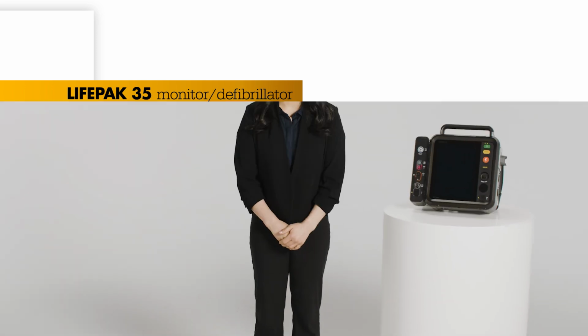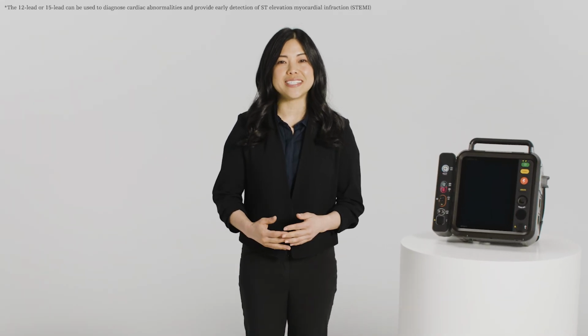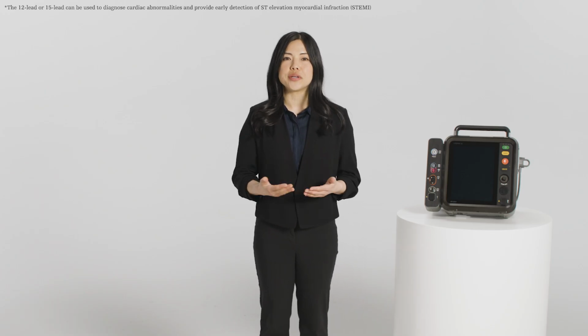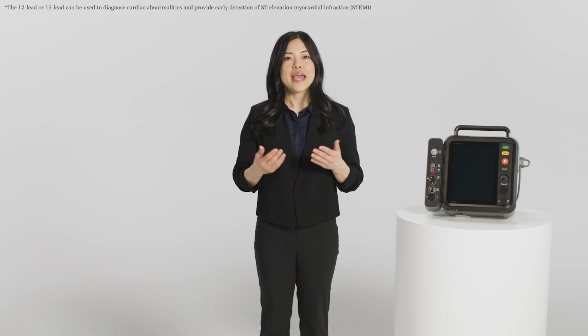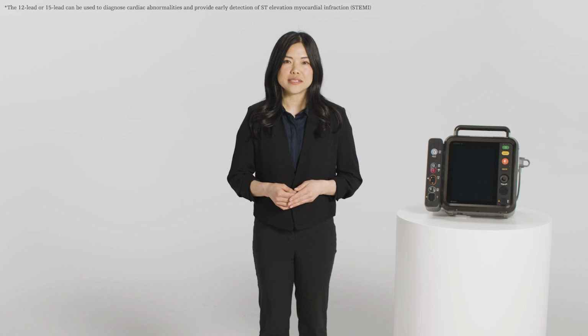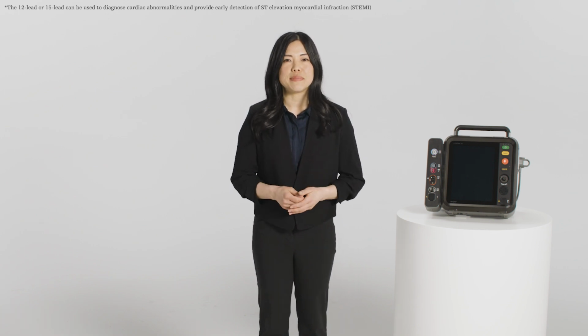The LIFEPAK 35 monitor defibrillator has the ability to acquire 12 and 15 lead ECG. This information may help trained healthcare providers determine the location and degree of myocardial ischemia, anticipate associated potential complications, and implement treatment. In addition, non-ischemic cardiac conditions and arrhythmias can be determined. 12-15 leads on the LIFEPAK 35 can be viewed live on screen, acquired, printed, or transmitted.